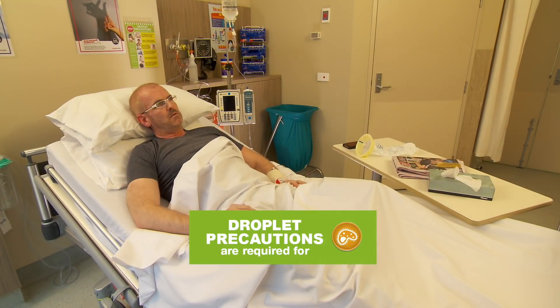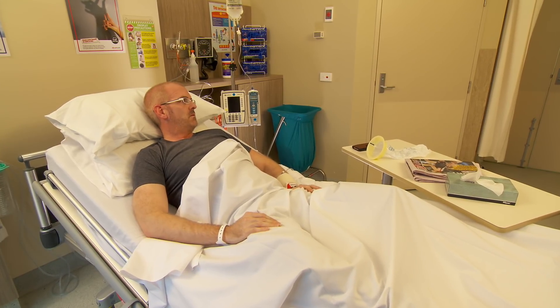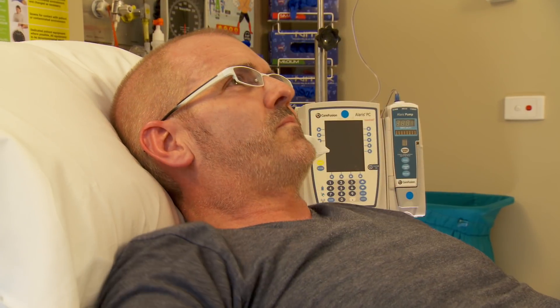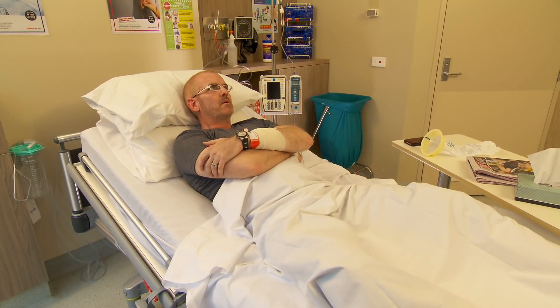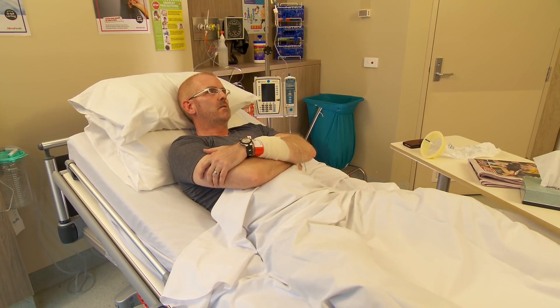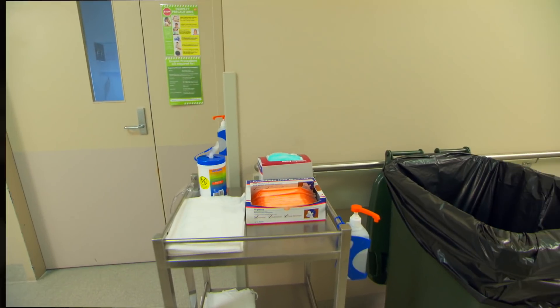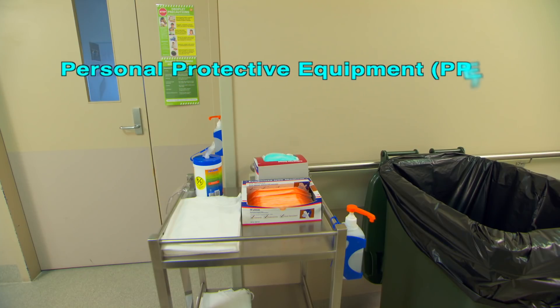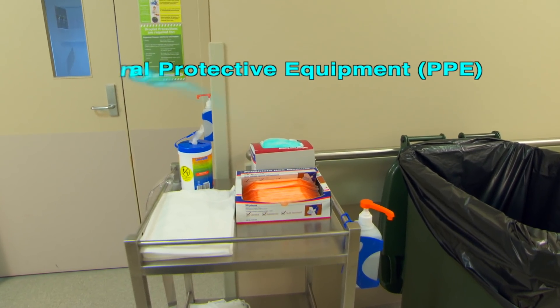Transmission-based precautions are to be used in conjunction with standard precautions when providing care to patients. John is being cared for in droplet precautions to reduce the risk of transmission of infectious agents to other patients, the environment, and staff who provide care to him. The personal protective equipment or PPE required for anyone entering the room should be readily available on a trolley outside the room.